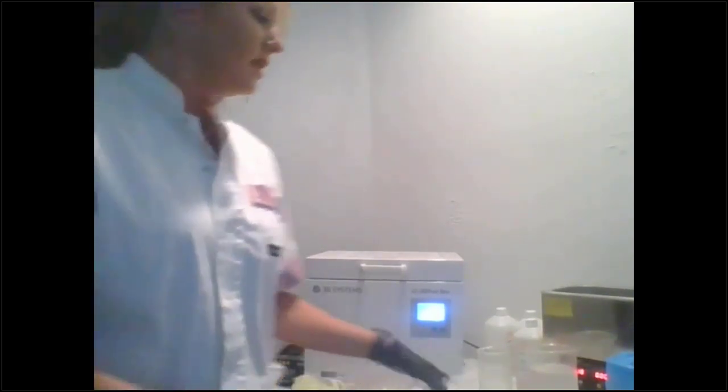Yeah, okay, sure. So the entry-level offering is called the Fab Pro, and it does not have that resin tray that I was talking about. It doesn't have the oxygen permeable membrane on it. So you are going to replace your resin tray more often, which is the vat that holds all of the resin. So when I said the Figure 4 technology on my PowerPoint, this is not Figure 4 technology. This is just a DLP printer. It's like a little industrial grade printer.